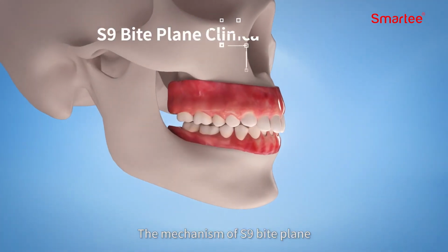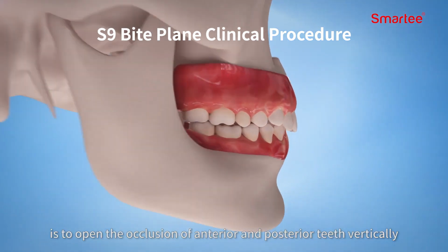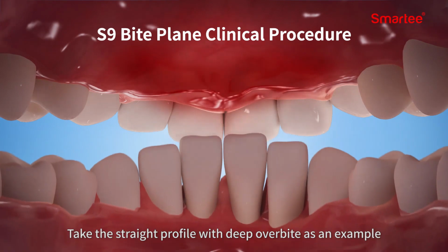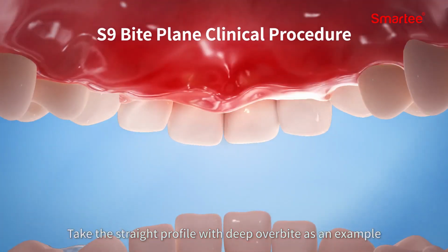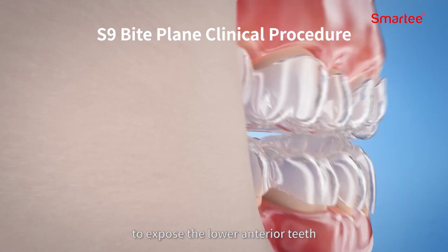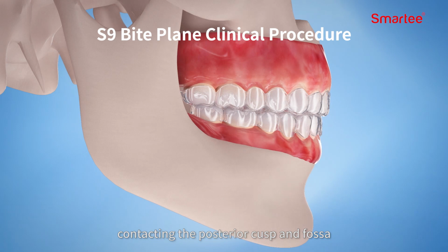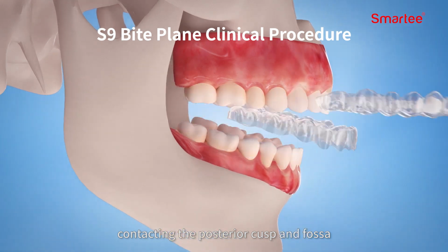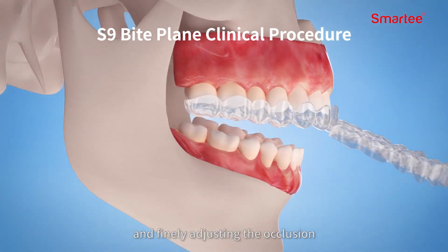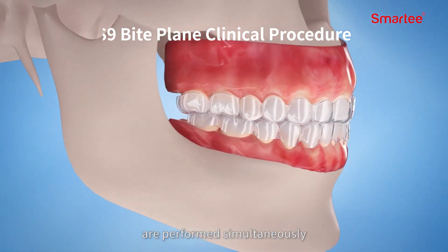The mechanism of S9 bite plane is to open the occlusion of anterior and posterior teeth vertically. Take the straight profile with deep overbite as an example. The clinical procedures include opening the occlusion to expose the lower anterior teeth, aligning and intruding the lower anterior teeth, contacting the posterior cusp and fossa, and finally adjusting the occlusion. Mandibular repositioning and occlusal reconstruction are performed simultaneously.